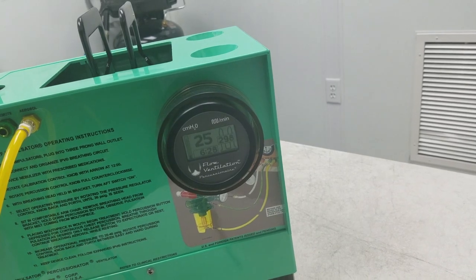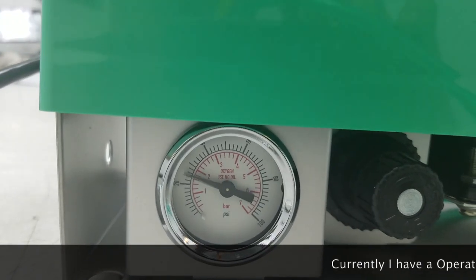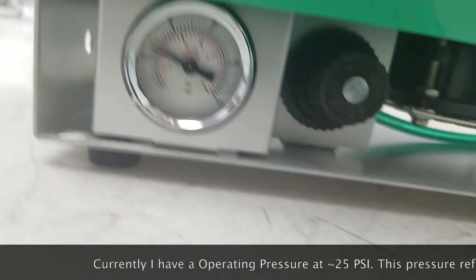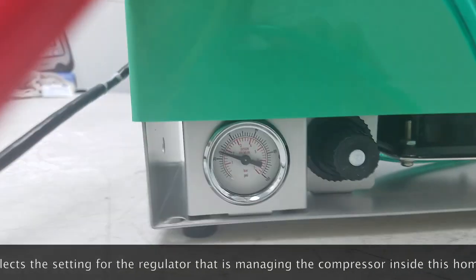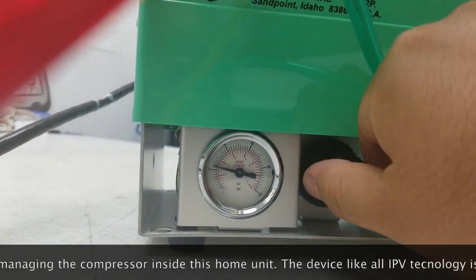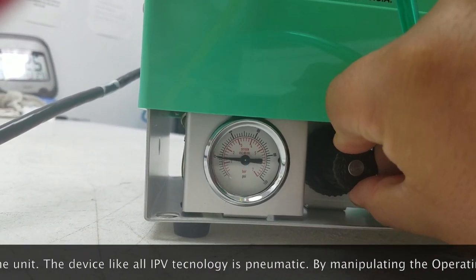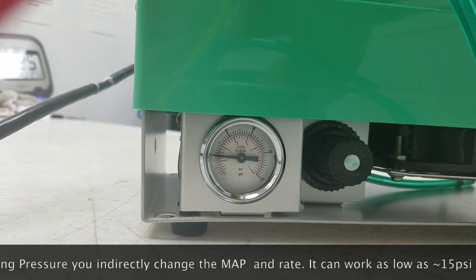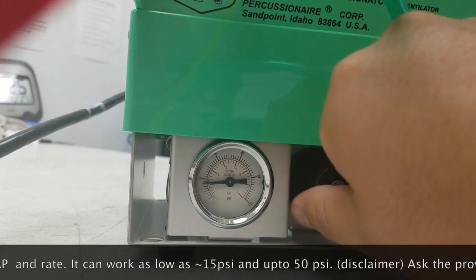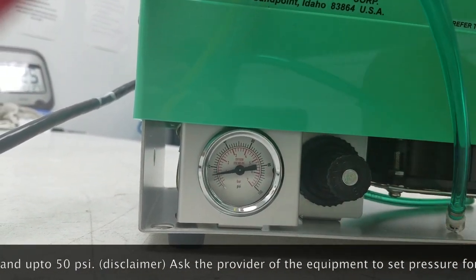That's currently at about 25 PSI. I'm going to lower that down to 20 now and see what happens to the rate — we were at about 298. I'm going to lower my operating pressure to 20. Then I'm going to use a trick where I cover where the green line would connect — that remote actually stops it, like it would stop the treatment if I had that type of Phasetron connected.